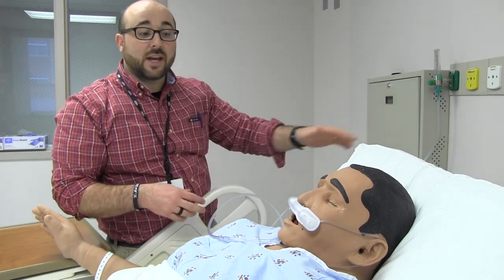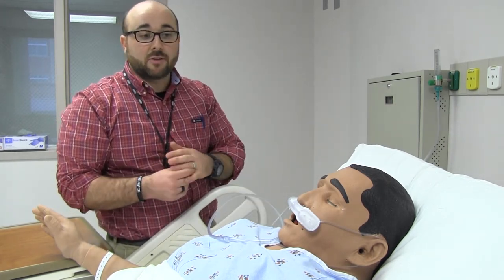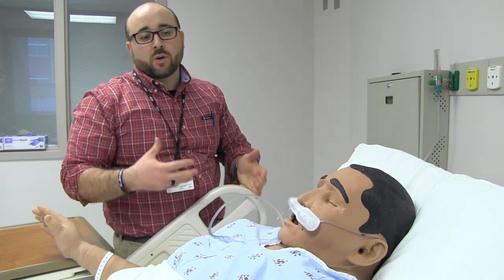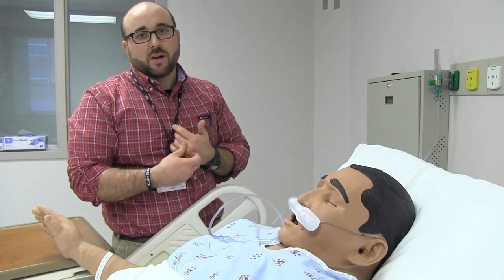So they can conserve their oxygen tank, but still get the same amount of FiO2. The one major downfall to this device is you can't add humidity to it. So it does work well at home, but doesn't work really well in the hospital setting.